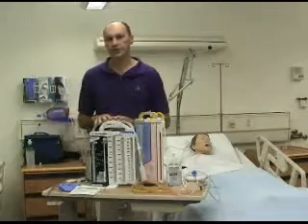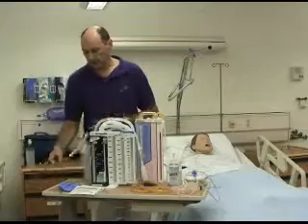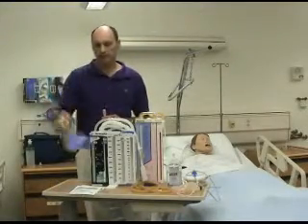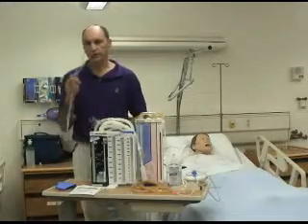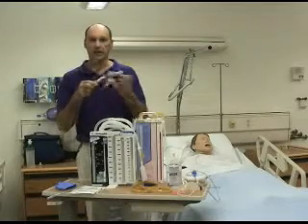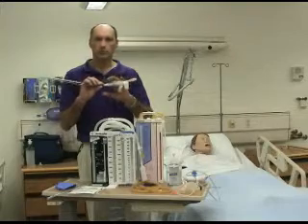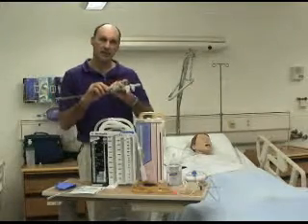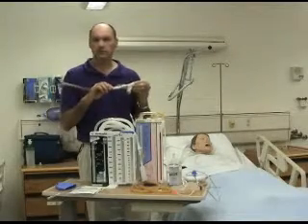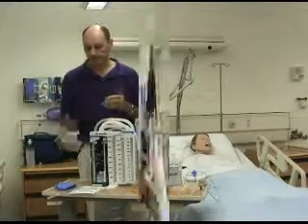Once I have the chest drainage system set up with the amount of fluid that I want, I take the chest tube and take a vinyl glove or latex glove and put it over the end of the chest drainage system, and then take a piece of tape and close that end. This piece of the chest tube will be placed along the mannequin's chest and covered with a 4x4 and then taped to simulate where the chest drainage system is inserted into the chest.